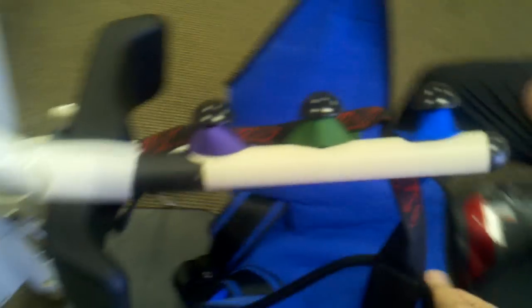When you order this lift, this is what it looks like right out of the box. I'm going to roll this — it does have a spreader bar. It doesn't take a lot of strength; as you can see, I can use one finger and do it. Then you just push it towards the scooter, which is what I'm doing right now.